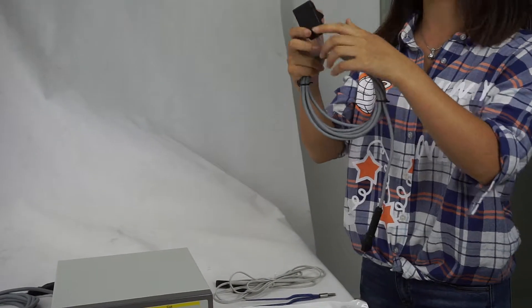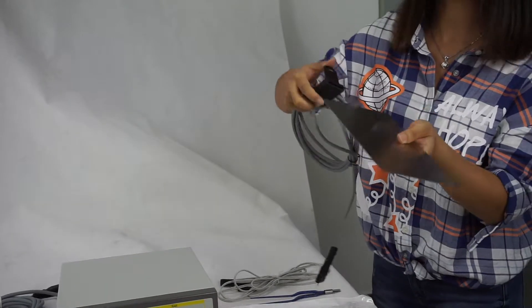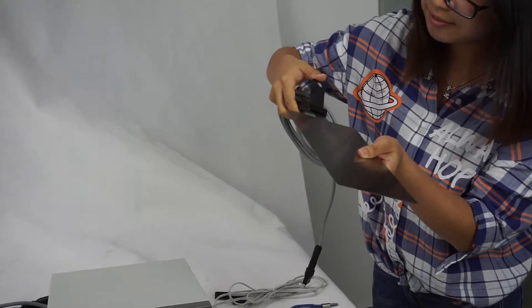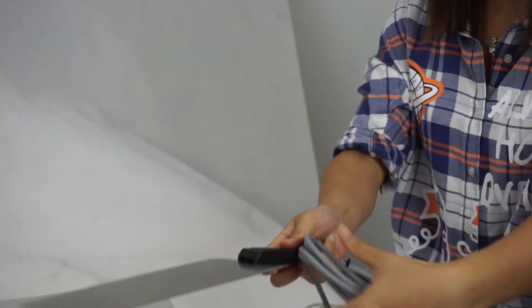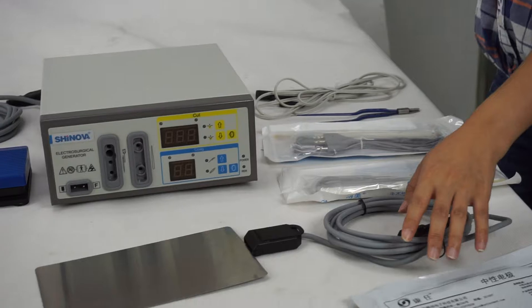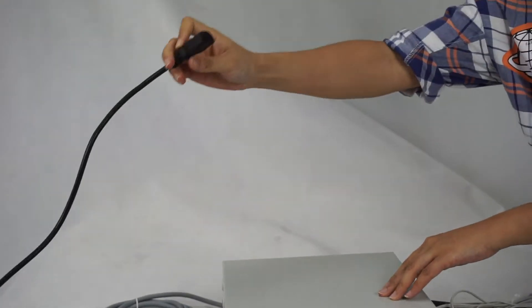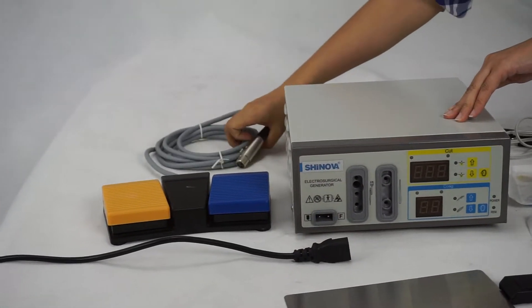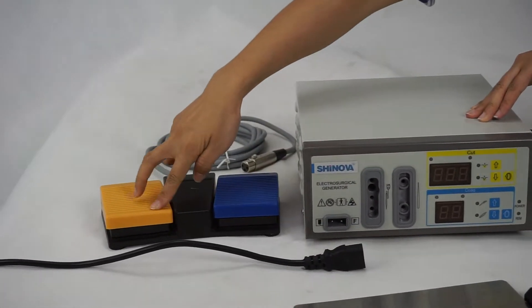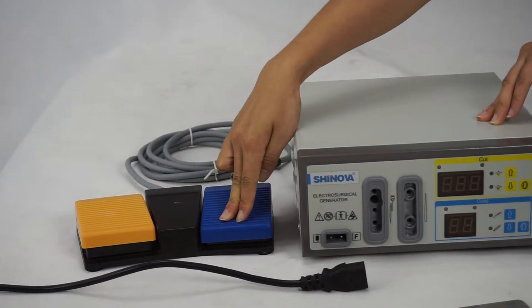The power cable is connecting the patient plates like this way. And this is power supply. This is foot switch. This is for cutting and this for coagulation.